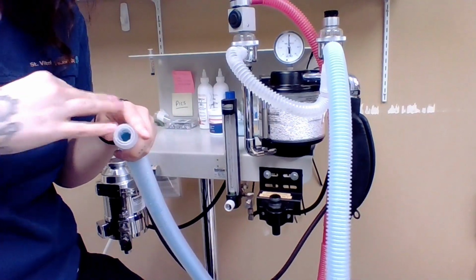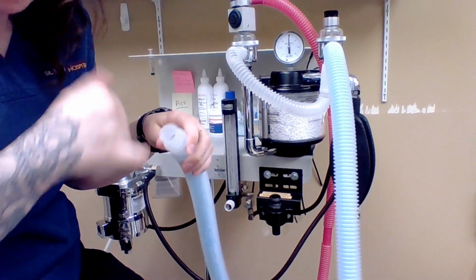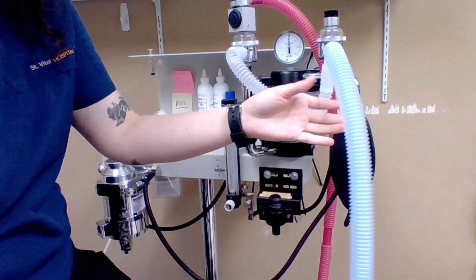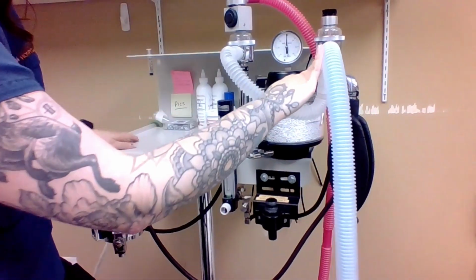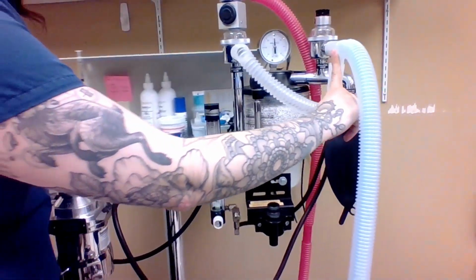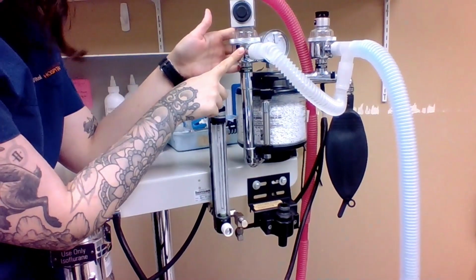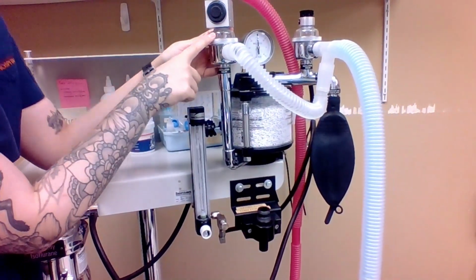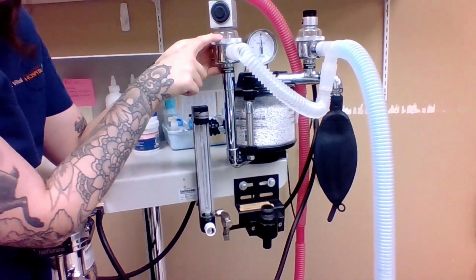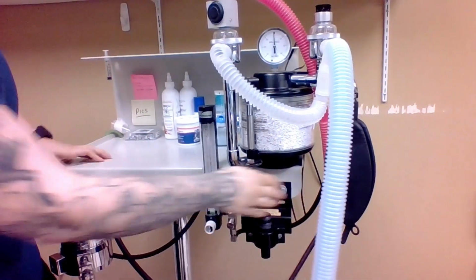So the oxygen and isoflurane would go into the patient, the patient would exhale, and it goes back through the clear tubing, through the expiratory limb, which is up and around here, and then it bypasses into this offshoot, which takes us to the expiratory limb, and then we have our expiratory flutter valves, as well as the rest of our limb.